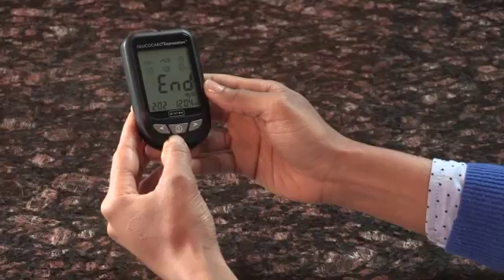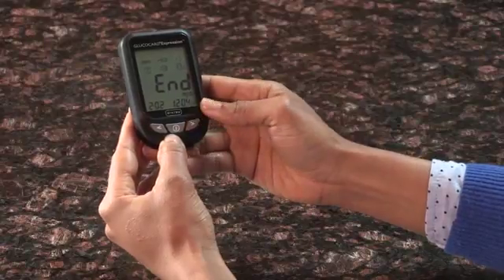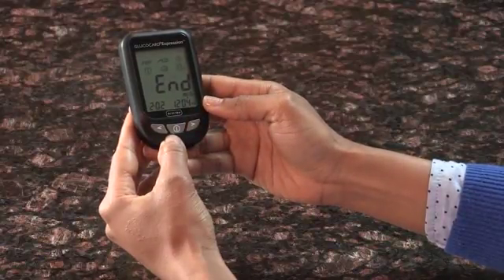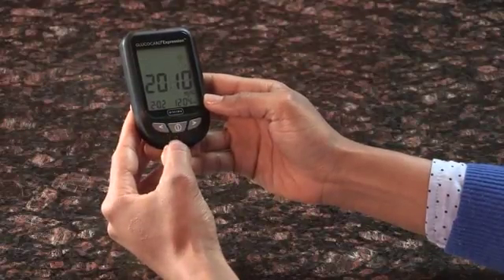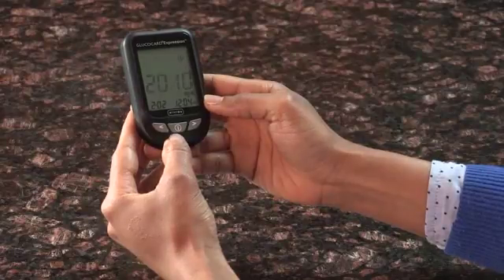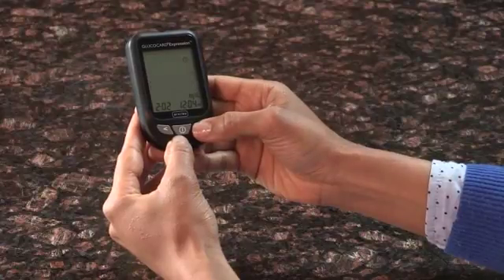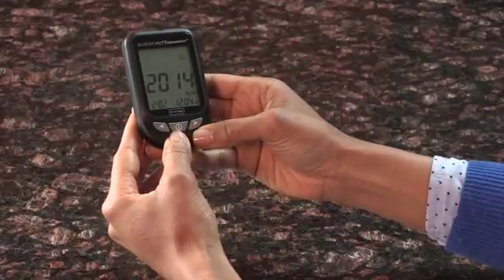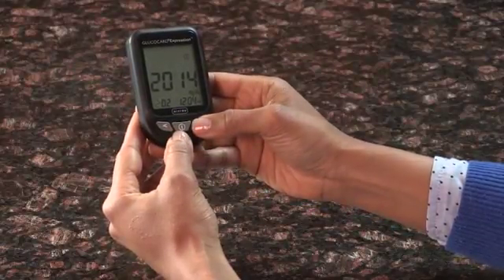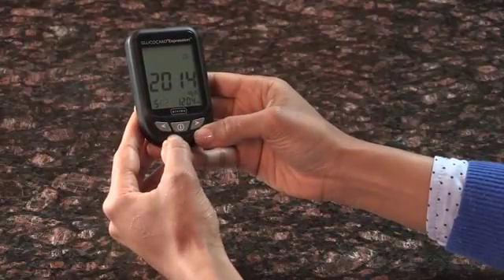To set the clock, press the left or right arrow until the clock icon is highlighted and begins to flash. If the voice function is on, the meter will say Set Date and Time. Press Enter to enter clock setup. From here, you will set the current year by pressing the left or right arrow until the correct year is displayed. Press Enter to confirm your choice and the screen will advance to set the month. Press the left or right arrow until the correct month is displayed. Press Enter to confirm your choice and the screen will advance to set the day.